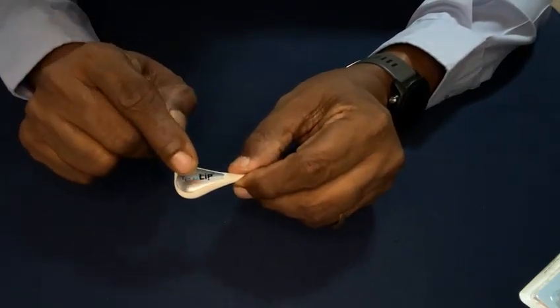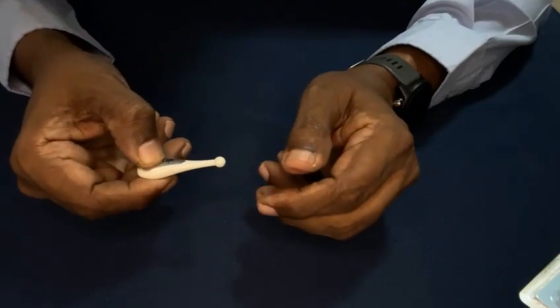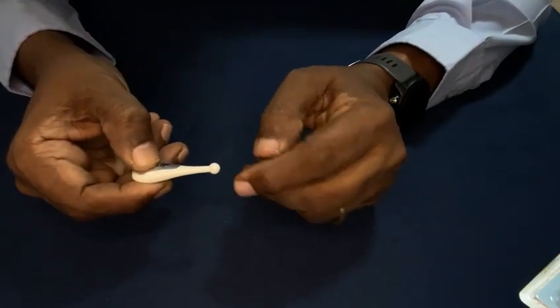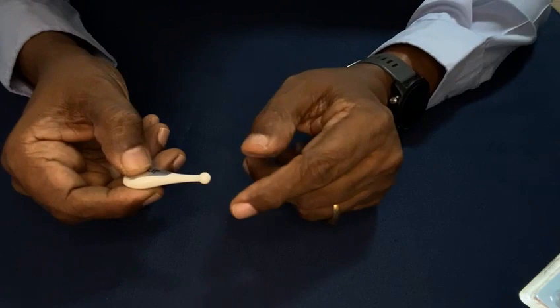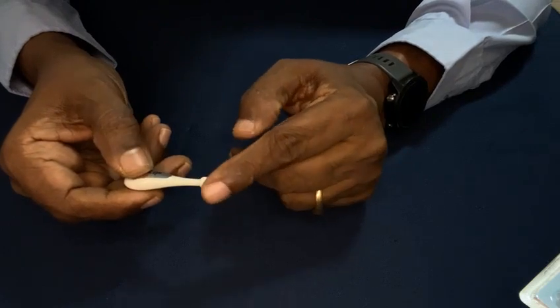This is the part, you can see the metal part. You have to press it. When you are pressing it, then the tip vibrates. When you are releasing it, the vibration stops.